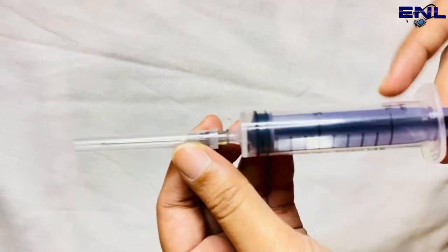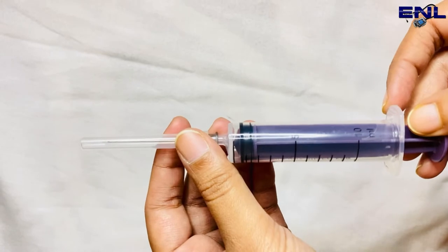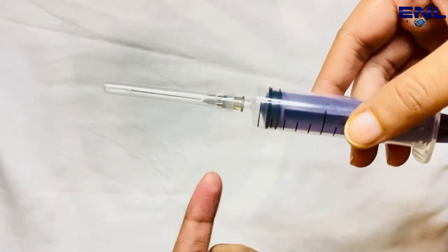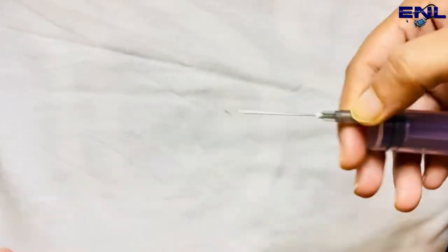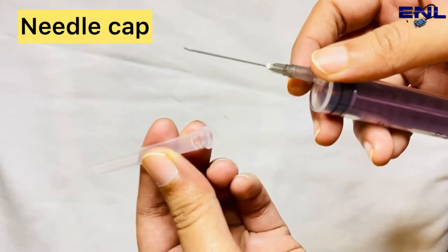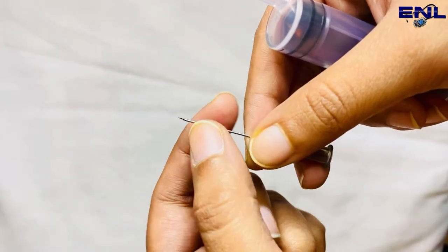This is a syringe which we get to see. This is a 10 ml syringe. Now we will discuss the parts of the syringe. First of all, we have the needle cap, which is in plastic form. And this is our needle.